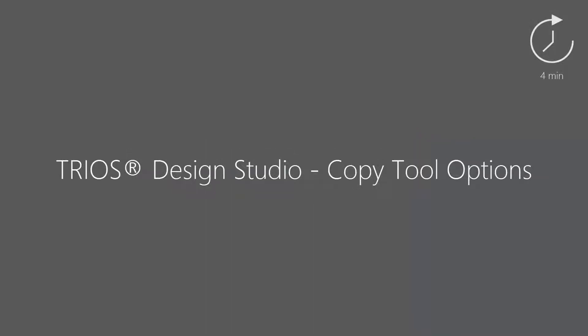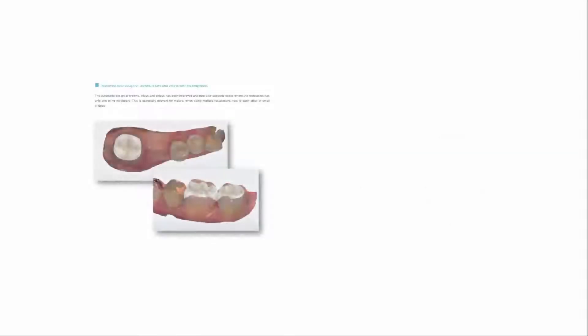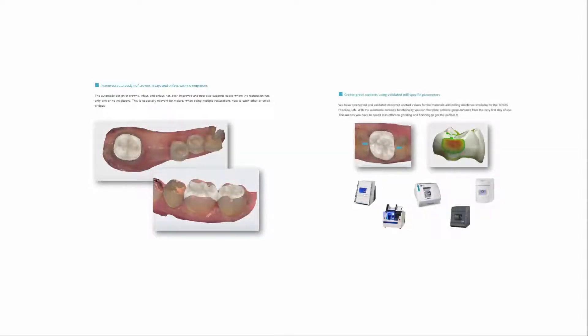In this video you will learn how to use the Trios Design Studio copy tool. Trios Design Studio is a complete digital workflow with fully integrated CAD CAM modules. This solution is dedicated to dental practices that would like to keep production of restorations like crowns, inlay onlays, veneers and bridges in-house.